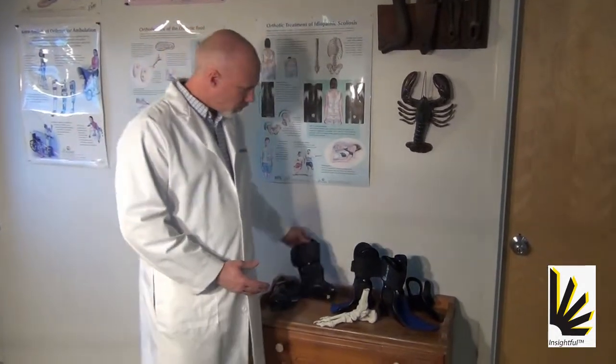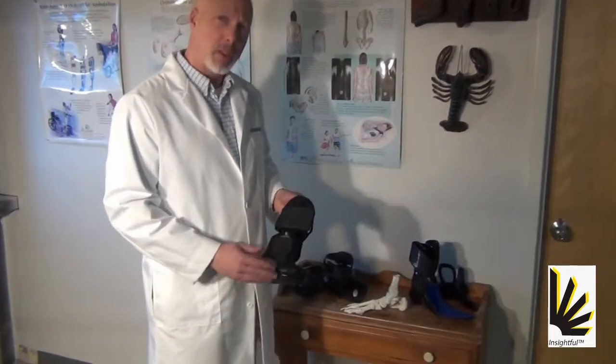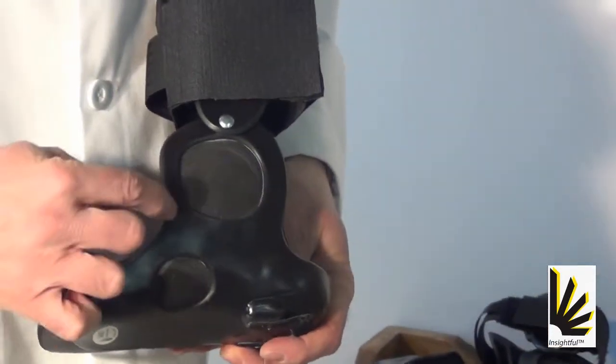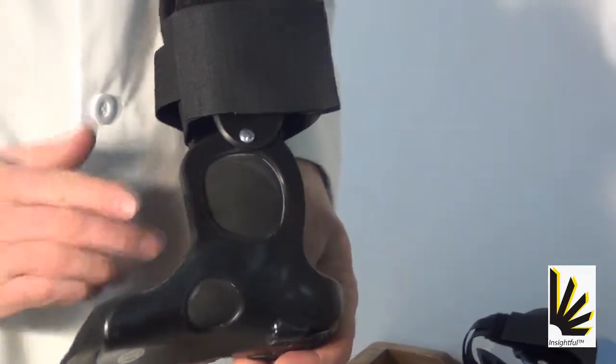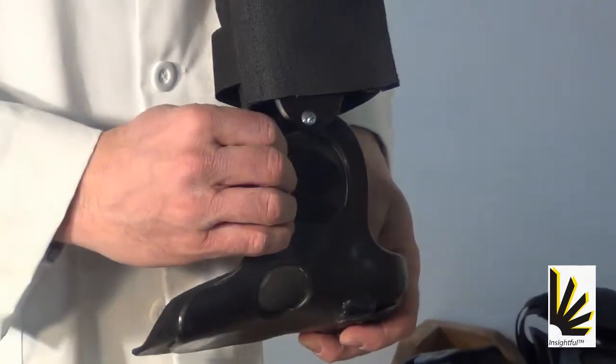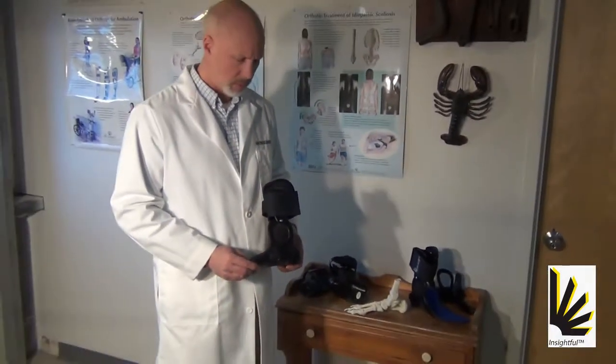So we then moved to a design that had both the medial malleolar window and the navicular window. And here you can see we have a jog, and what this jog does is it allows for the anterior frame of that window to come right behind the throat of the shoe but in front of the medial malleolus.